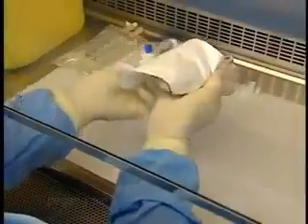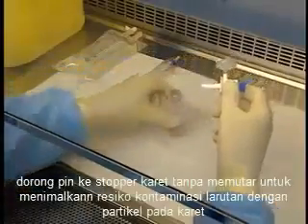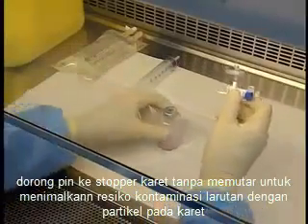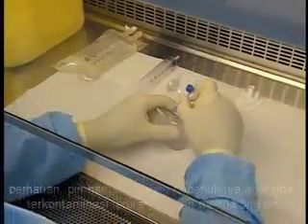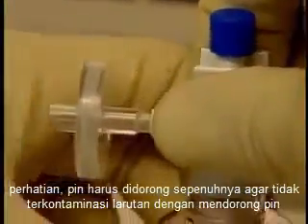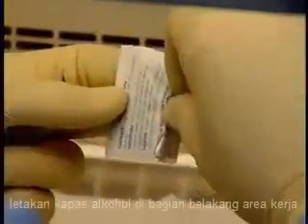Grasp the dispensing pin by the flanges. Push the pin into the rubber stopper without turning to minimize the risk of contaminating the solution with rubber particles. Caution! The pin must be pushed in completely so as not to contaminate the solution by pushing the pin in further later on. Place an alcohol swab at the back of the work area.